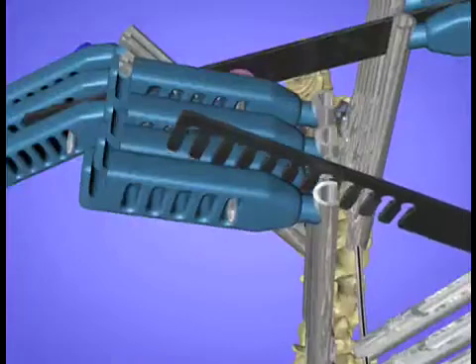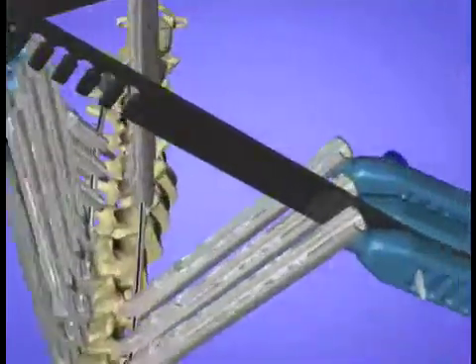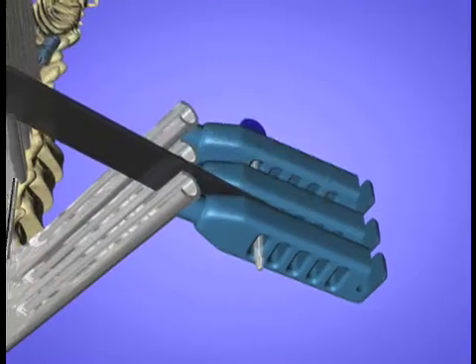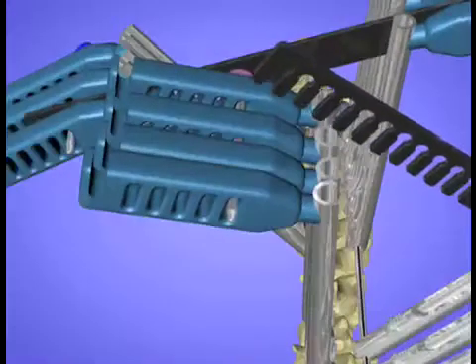If a comb does not drop on easily, use the second groove on the double grooved side of the comb. Now, the other side of the comb drops into place easily.